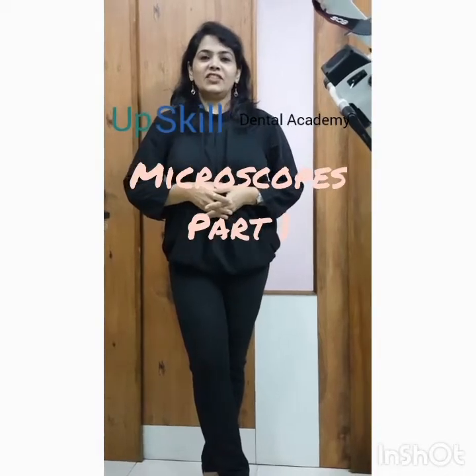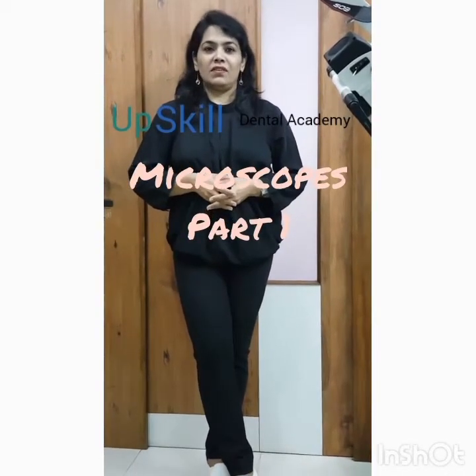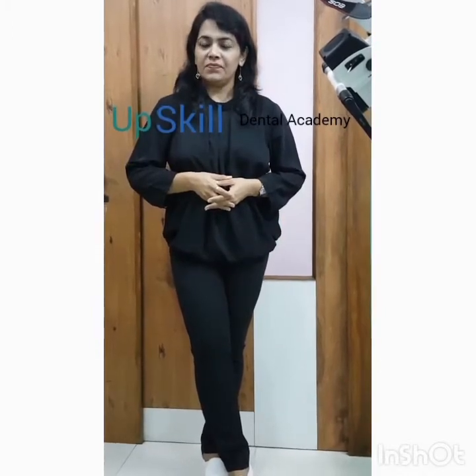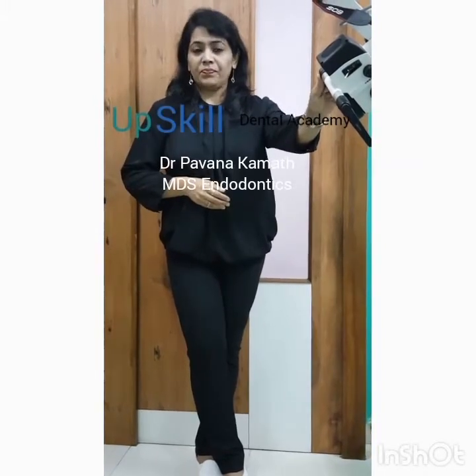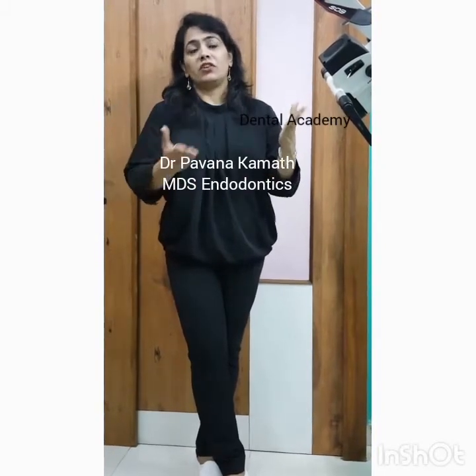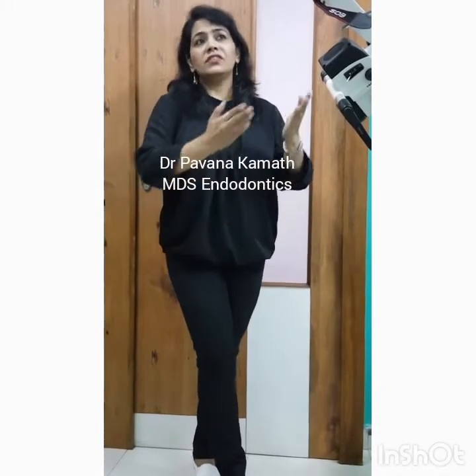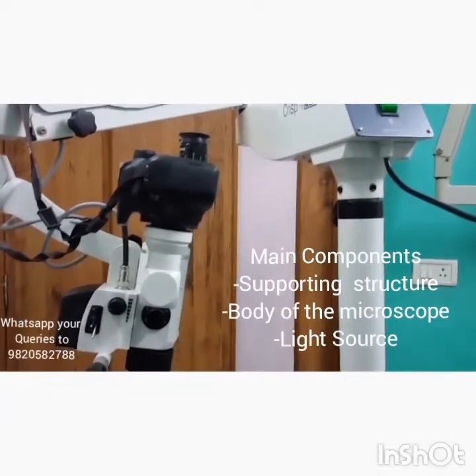Hello everyone. Today's video clip is on one of the most invaluable tools in dental operatory — the dental operating microscope. An often intimidating thought of using a dental microscope is simply due to the lack of knowledge of the different parts and the understanding of the concept of magnification. Today's video is based on the very basics of the dental operating microscope.